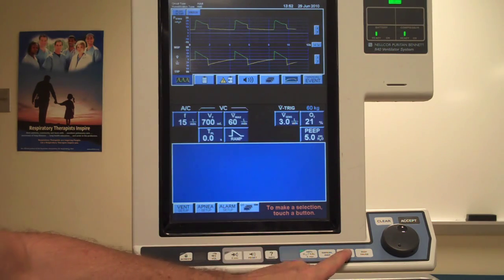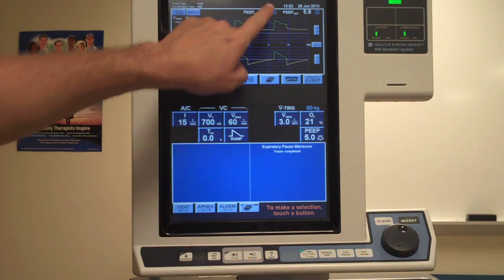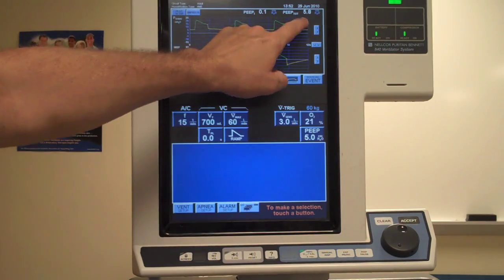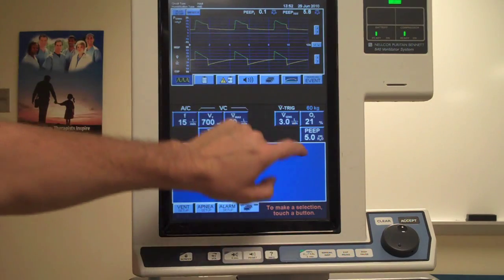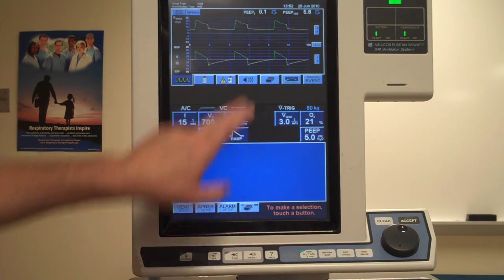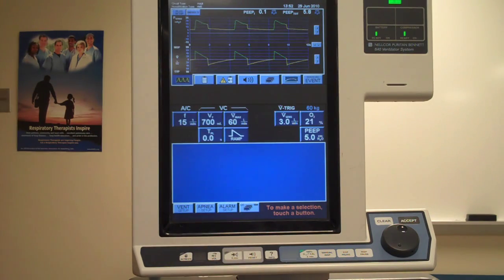By pressing and releasing the expiratory pause button, the maneuver is initiated and the ventilator displays the auto PEEP — in this case the actual measurement — and the total PEEP. There is a slight variance between the measured PEEP and the set PEEP, which is just a little bit of artifact from using the test line. So here we have an auto PEEP of 0.1 cmH2O.